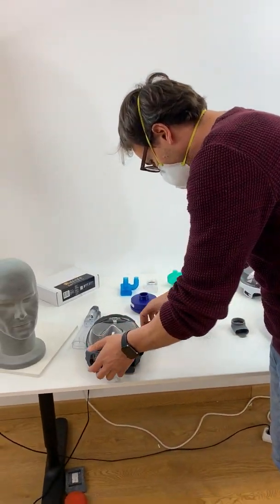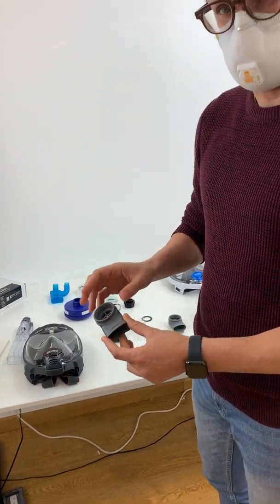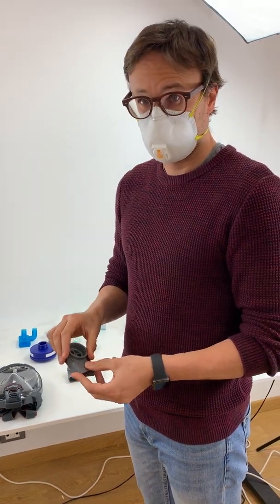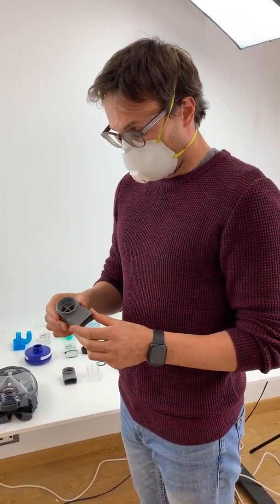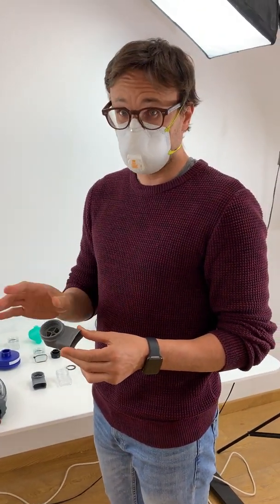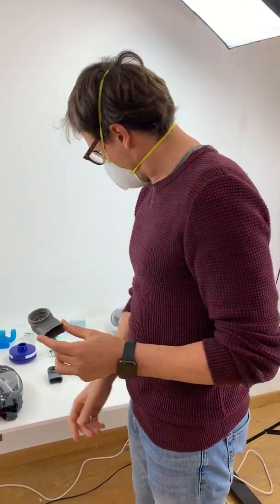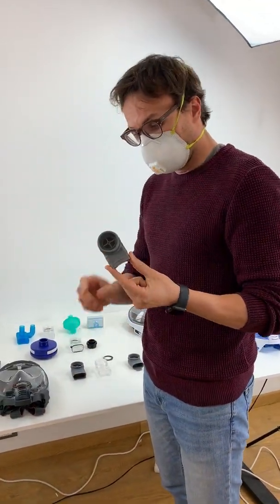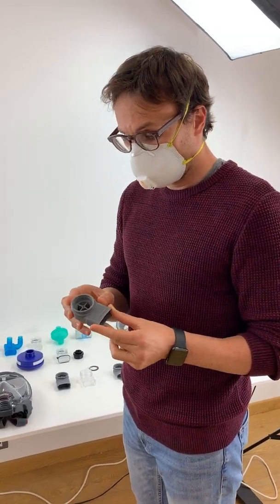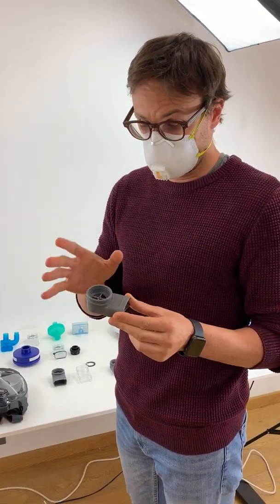These 3D printed pieces — the design is available on our website on the COVID-19 page. You can find 11 different kinds of 3D print files that you're free to download. There's a license agreement for non-profit use of our patent. Importantly, there is also a file dedicated to FDM printing, which is more convenient for that kind of 3D printer.